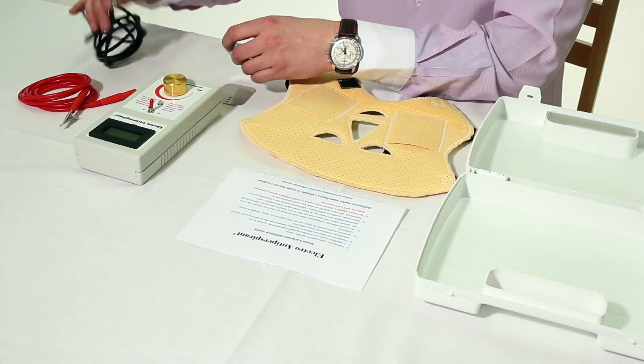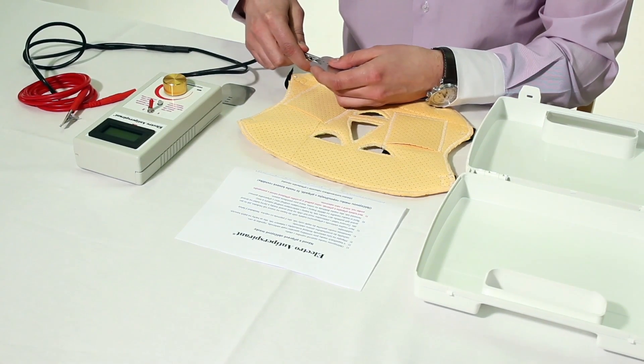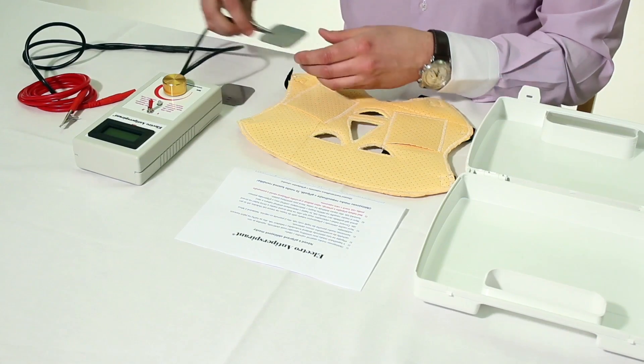Connect these electrodes to the supplied conductors so that the hooks at their end get caught in one of the holes of each electrode.